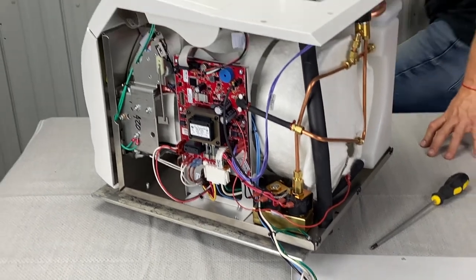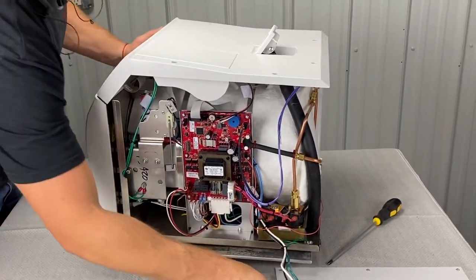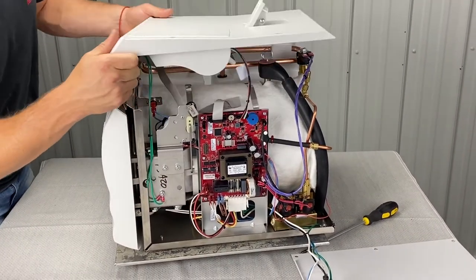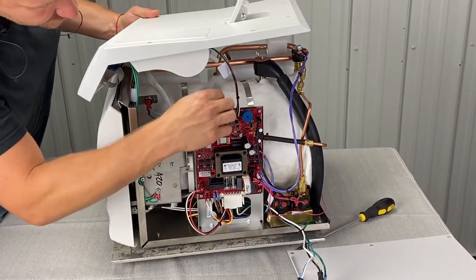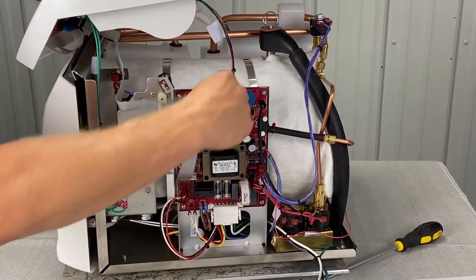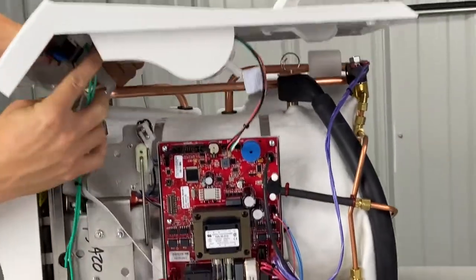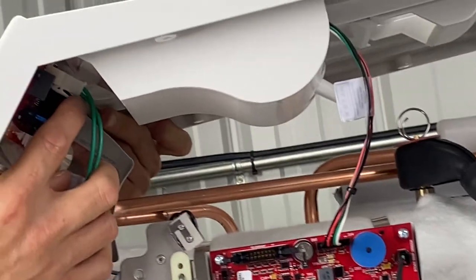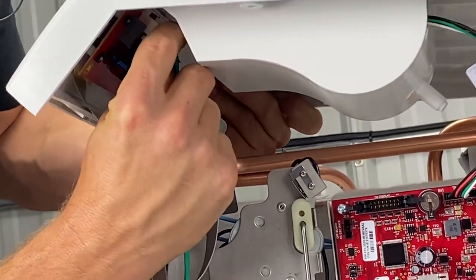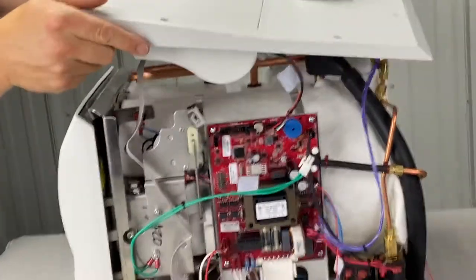Then we'll go back here. Since we've got it connected, you'll have to take the top cover off — that should just pull right off. But keep in mind, we've got ground screws here and the digital display here. You'll pull this open right here, and there's a connector with a little thumb piece — you push on that and pull. Don't drop this thing; it's pretty expensive.